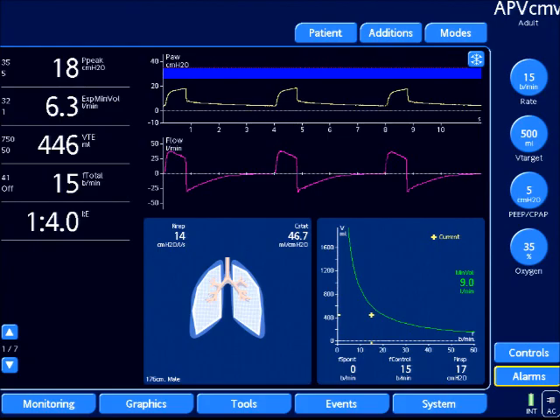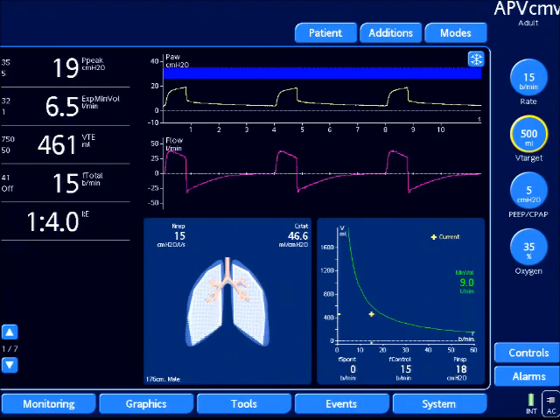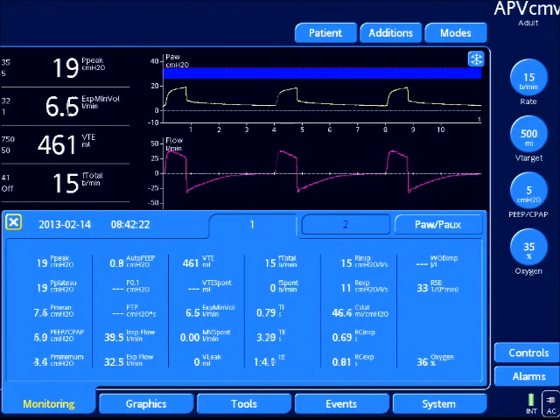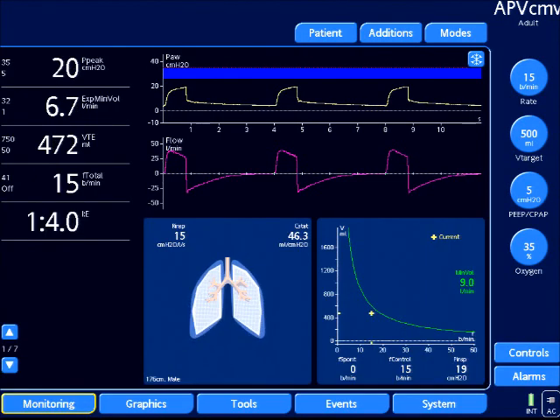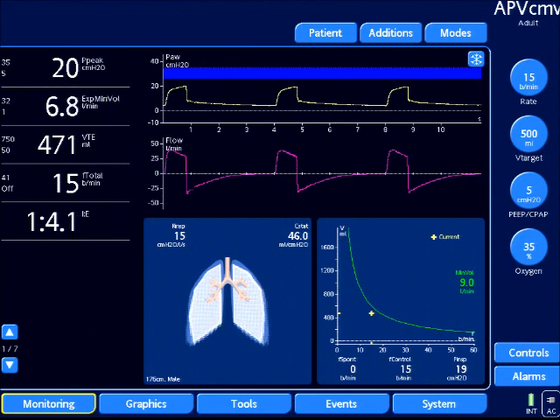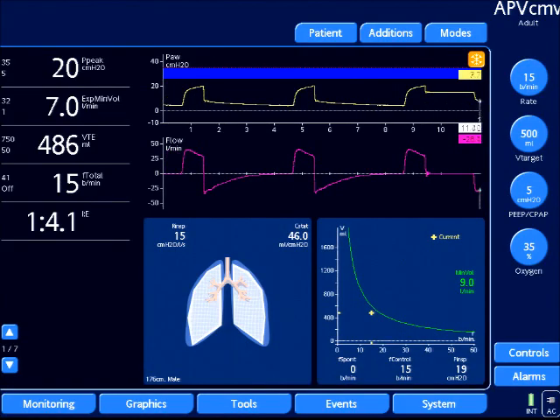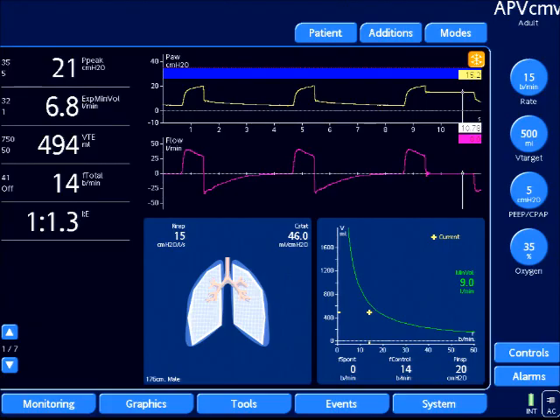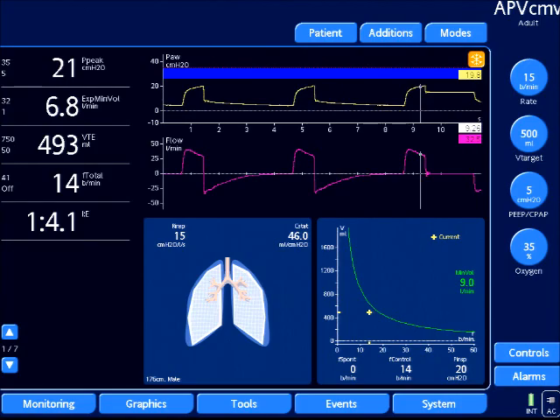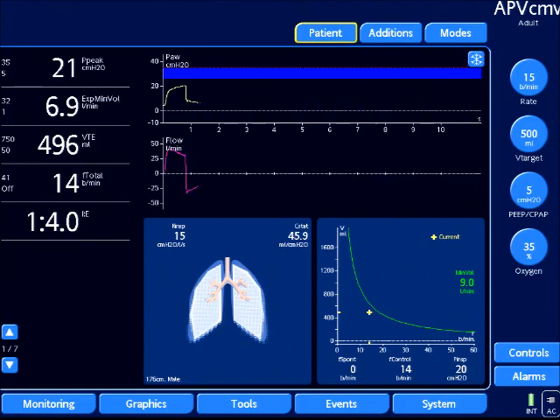You can also obtain a plateau pressure during adaptive pressure control ventilation, otherwise known as PRVC or auto flow. Looking at my monitoring tab, my peak is 19 and my plateau is 19 — however, this is false. This is a pressure control based mode, and if we look at my flow waveform in purple, it's not fully decelerating, so they shouldn't be equal. I'm going to do an inspiratory hold to show this difference. Tracing over with the cursor, my measured value is 15 — so my plateau is 15, quite different than the 19 or 20 centimeters of water versus my peak airway pressure.